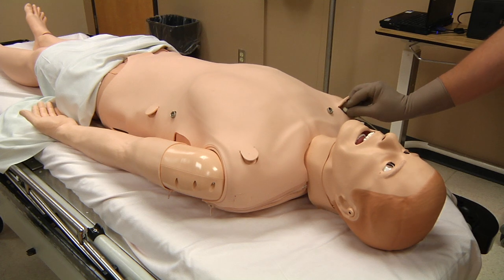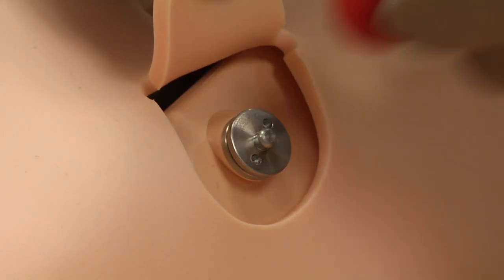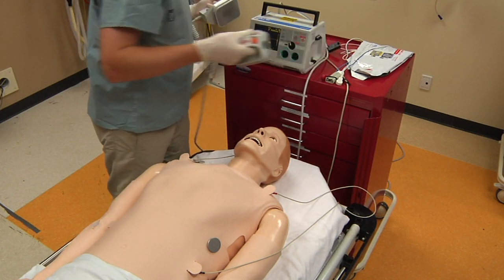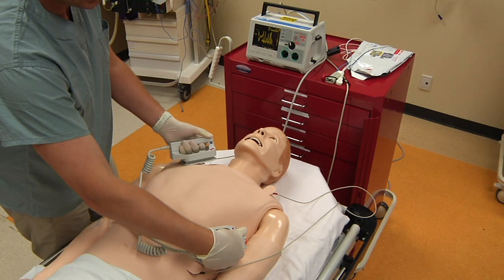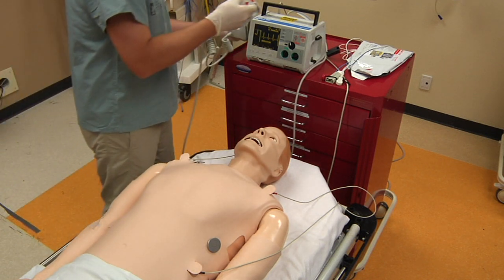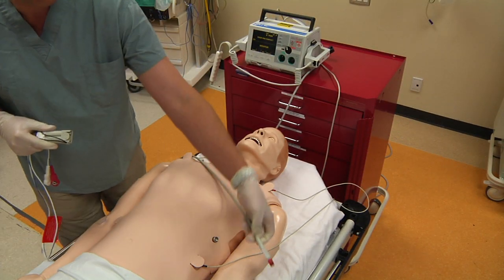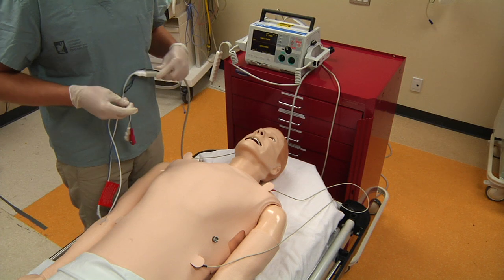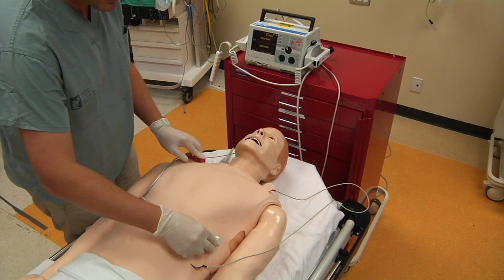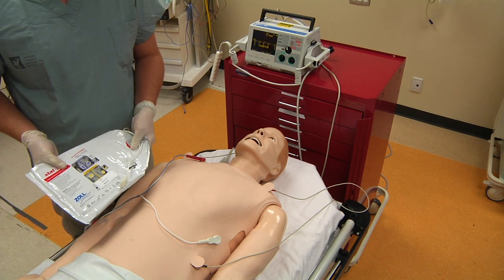Attaching a 3-lead ECG to the simulator's connection studs will monitor cardiac rhythms. The mannequin can be defibrillated, if needed, using a real defibrillator. If the mannequin is equipped with defibrillation plates, then defibrillation should be performed using hand-held paddles, but not using conductive gel pads. If the mannequin is configured with defibrillation posts, you will need to defibrillate using the electrodes supplied with the mannequin, attached directly to the posts located on the mannequin's torso. Do not use standard defibrillation pads with SimMan, as they damage the mannequin.